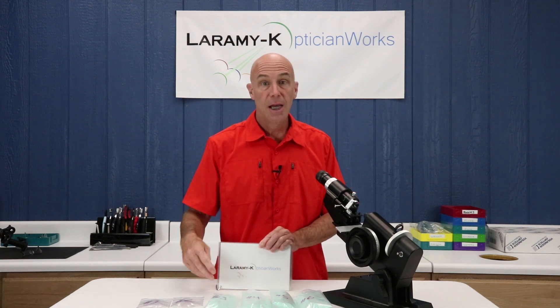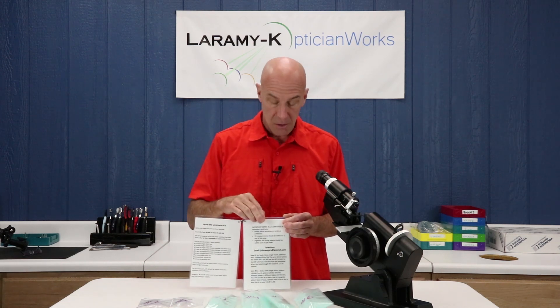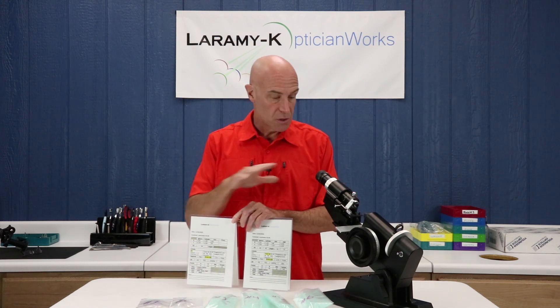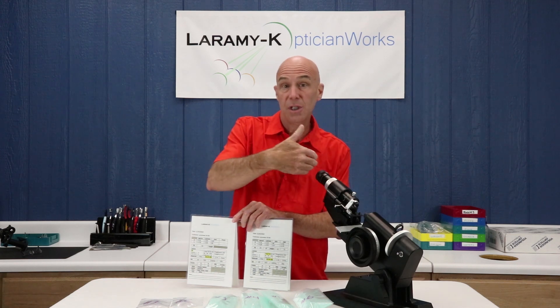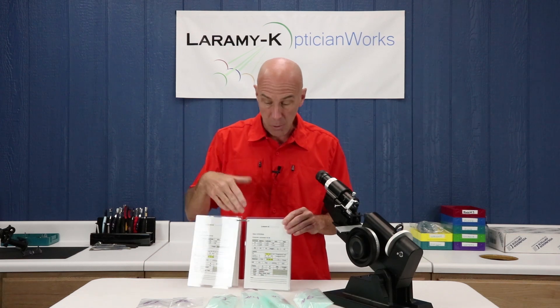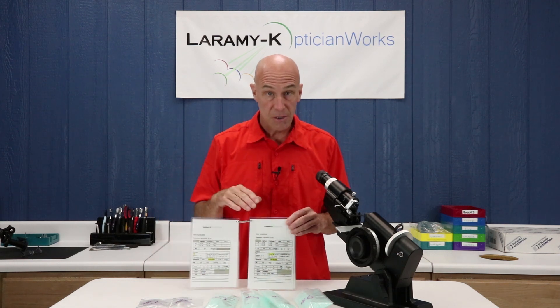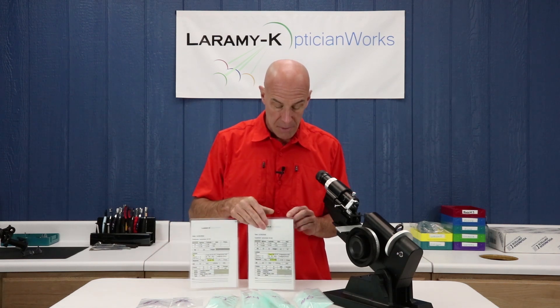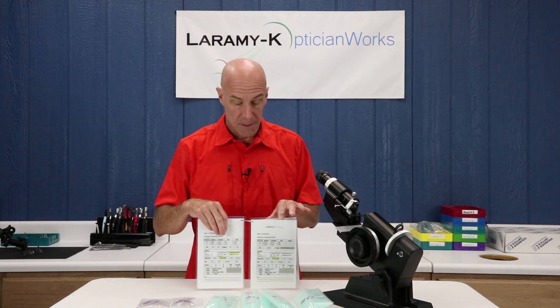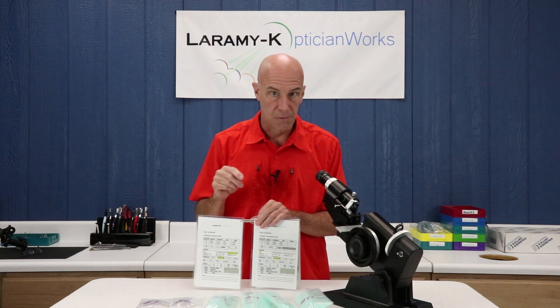You'll get a box, and inside the box there are going to be nine pieces and this booklet. The booklet starts with a review of what's in the kit, gives you some tips on using it, and two single vision lenses where you'll just learn how to move a lens around and what you see when you look in the lens meter, and start learning how to use the power drum. Then we'll jump into some job order forms and actually look at a single vision lens, aligned bifocal and a progressive, loose lenses. Then we'll get into mounted pairs where we're doing some verification, final inspection kind of work. And last, we'll wrap up with three examples of actual layout work for those of you that are interested in finishing.